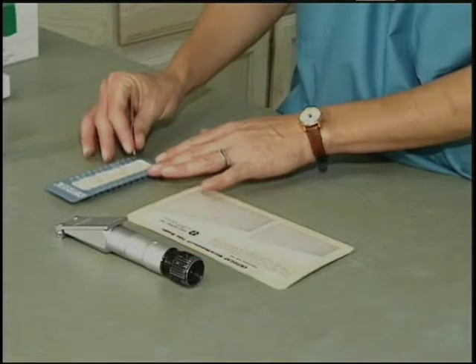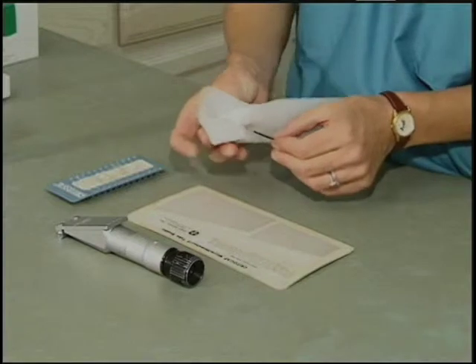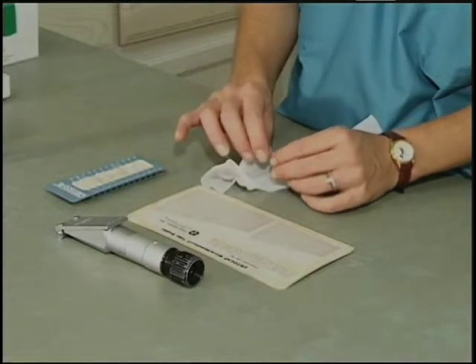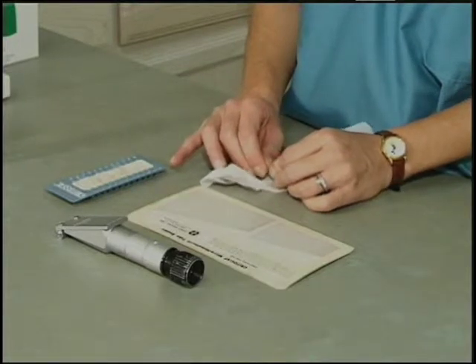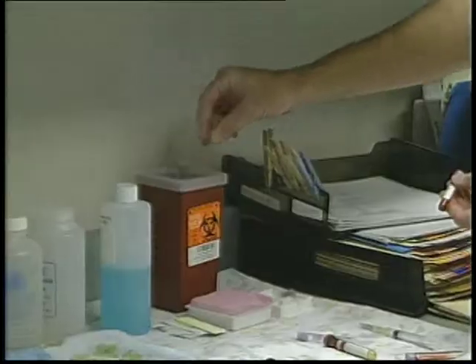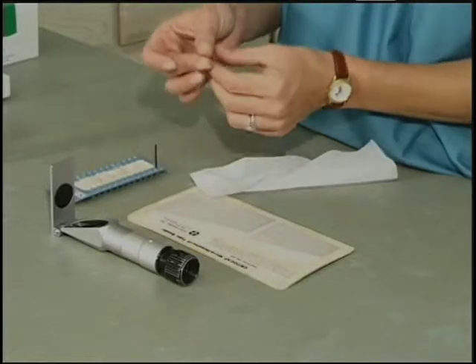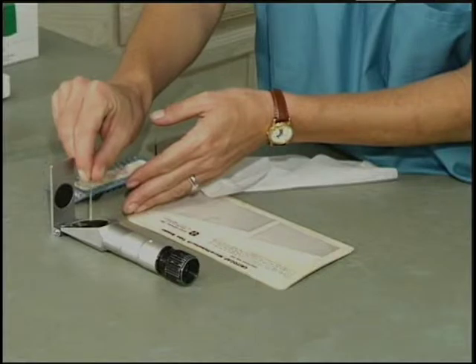The outside of the tube is cleaned with tissue to remove possible blood contamination. The tube is positioned between your fingers just above the point where the blood cells stop and the plasma begins. With gentle pressure, snap the tube in half. The portion containing the blood cells can be discarded into a Sharps container. A drop of plasma can now be lightly tapped out onto the refractometer window and evaluated in a similar fashion.